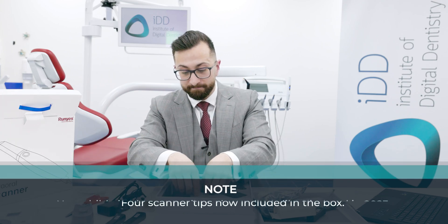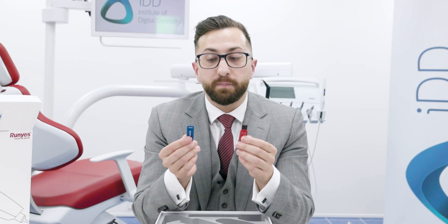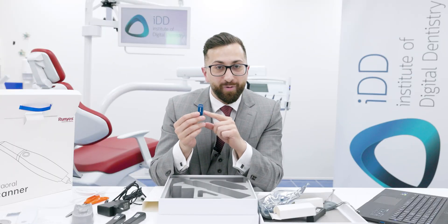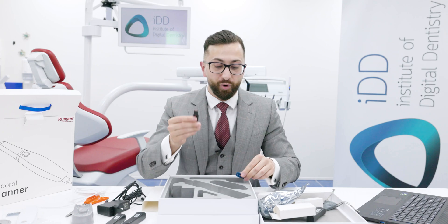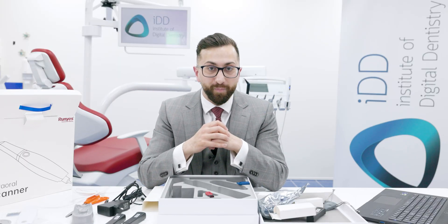Finally, we get two USB drives. One of them appears to be an activation dongle — it says 'Superdog' on it, and I'm not entirely clear what it is for. Once I start testing the scanner I will confirm in the review. The other one has the installation manual and the software to install.